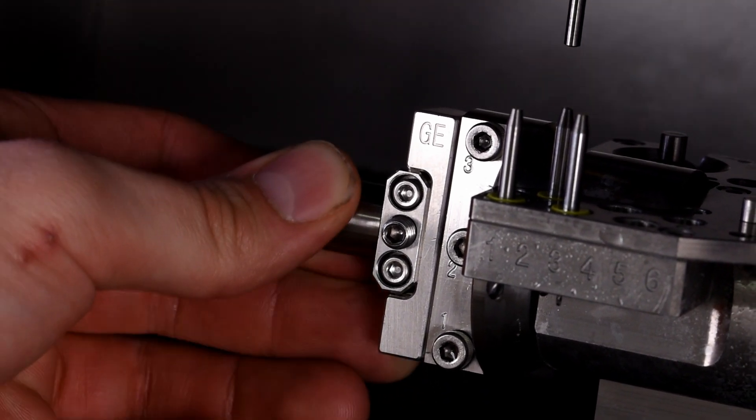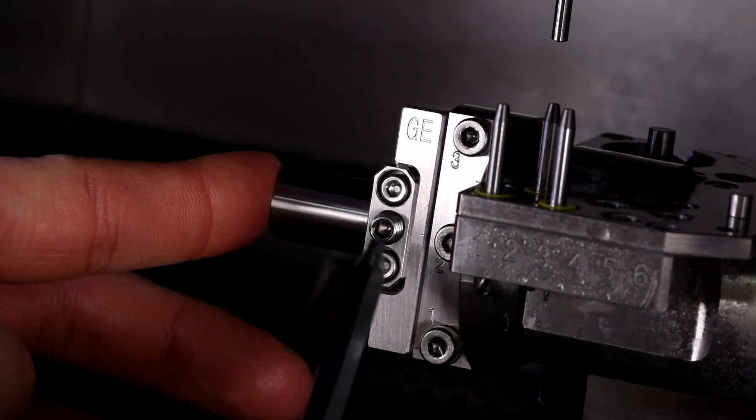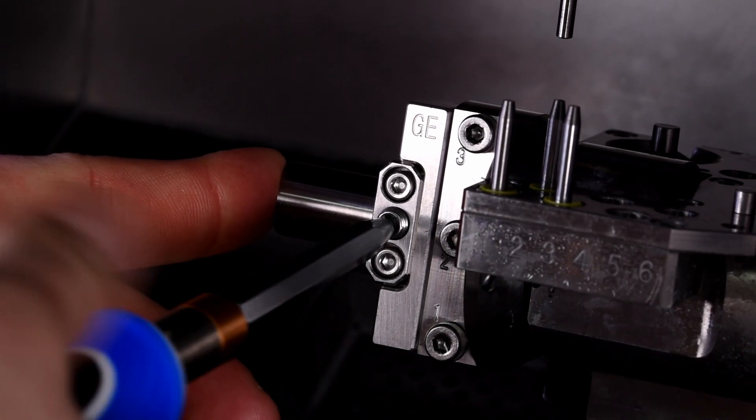Titanium blanks benefit from a pre-machined connection, providing a perfect fit with the implant screw.